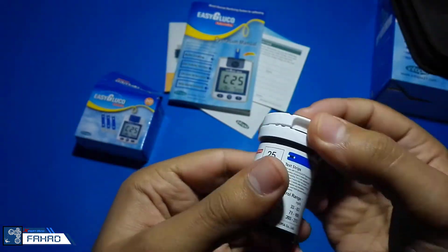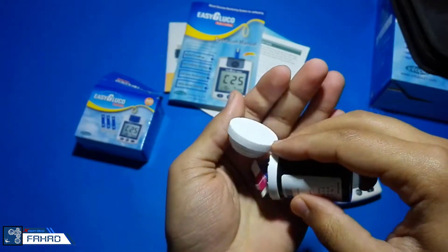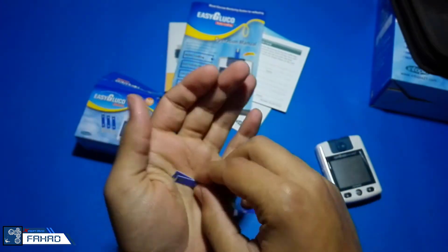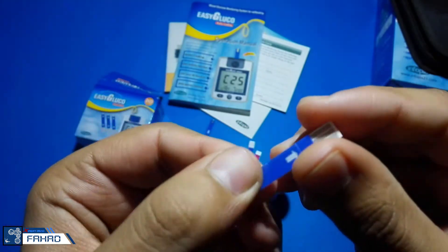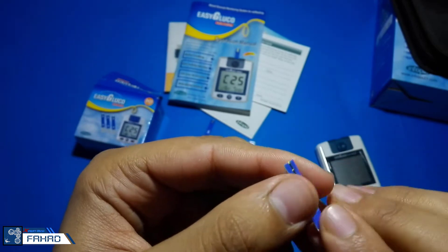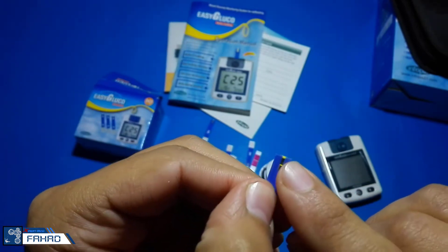And these are called the strips. Each glucose meter has its own strips. The codes are written on the strips and also in the machine. These strips are called C25. They have a simple circuit. Basically it consists of an enzyme, which I will explain later.